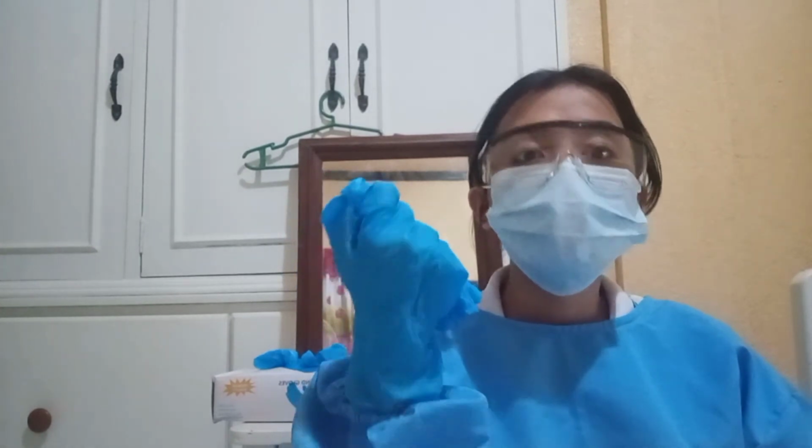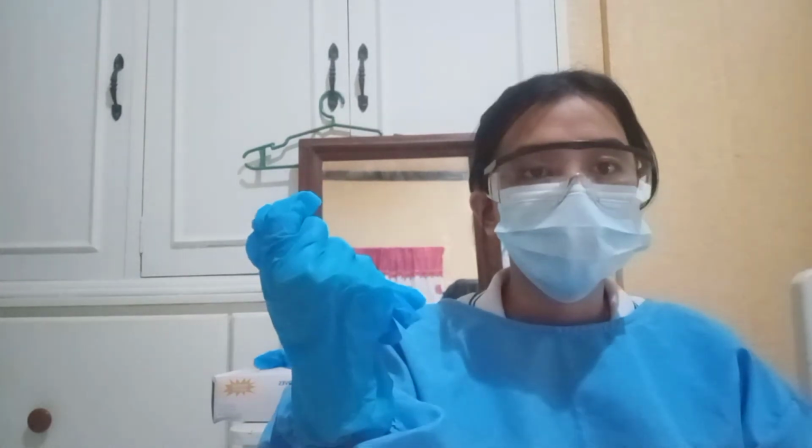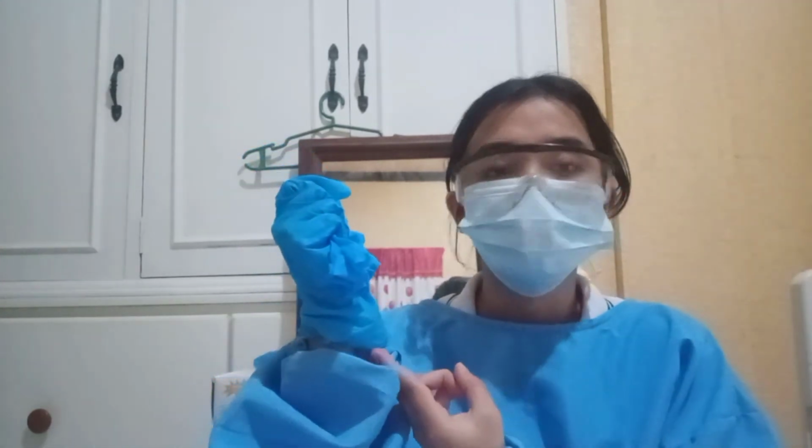Remove the first glove by grasping it on its palmar surface, taking care to touch only glove to glove. This keeps soiled parts of the used glove from touching your skin, wrist, or hand. Pull the first glove off completely by inverting or rolling it inside out. Continue to hold the removed glove in the fingers of the remaining gloved hand. Place the first two fingers inside the cuff of the second glove.